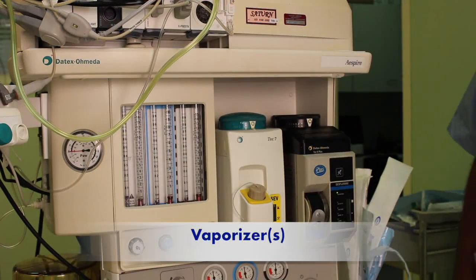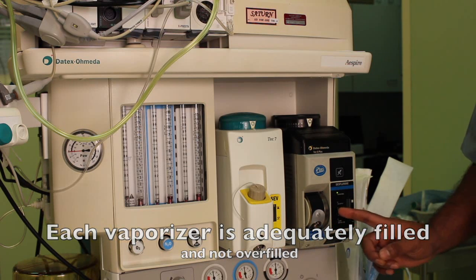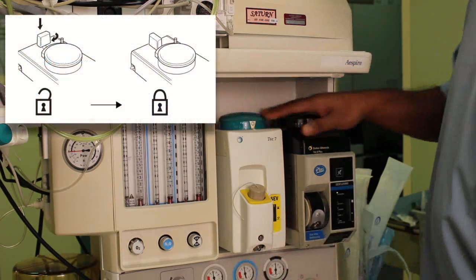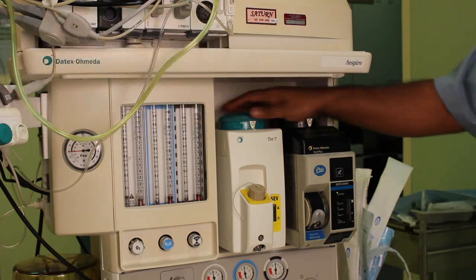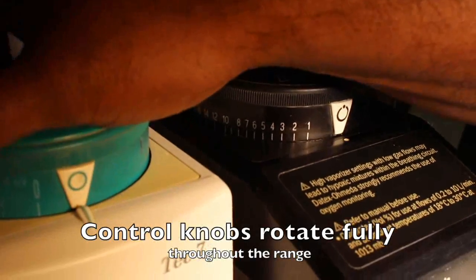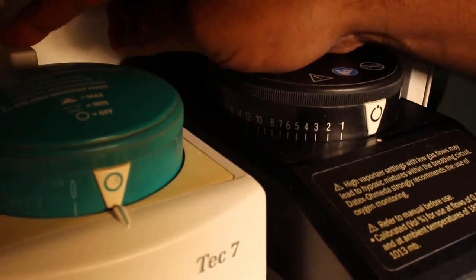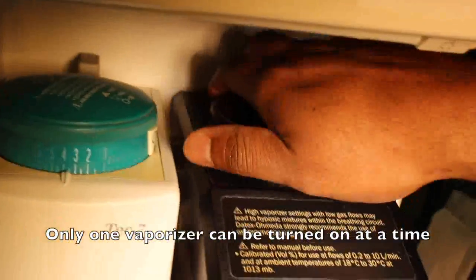Next, we will check the vaporizers. Check that each vaporizer is adequately filled and not overfilled. Check that each vaporizer is correctly seated onto the back bar and that the locking mechanism is fully engaged. The control knobs should rotate fully throughout the range. Because of the locking mechanism, only one vaporizer can be turned on at any time.